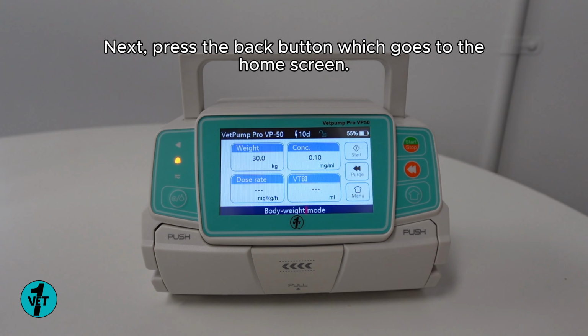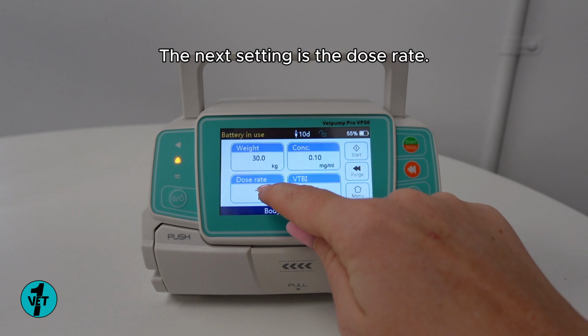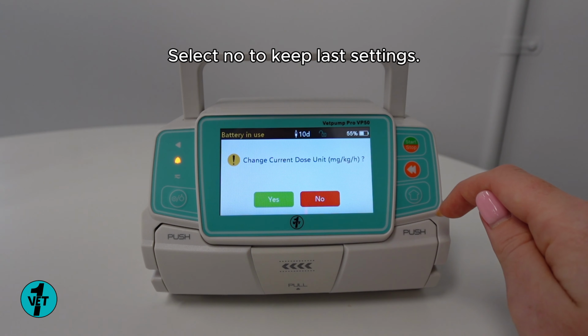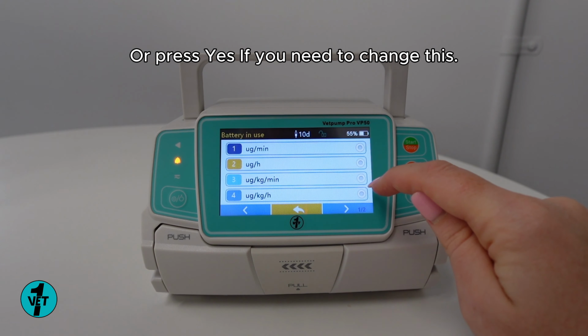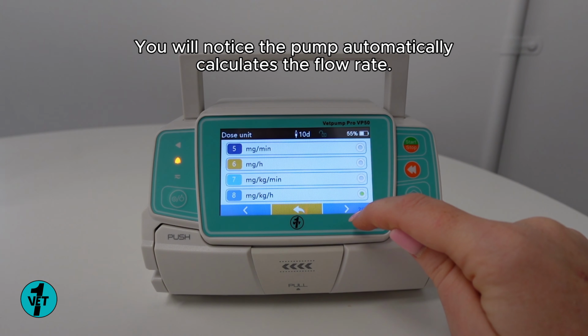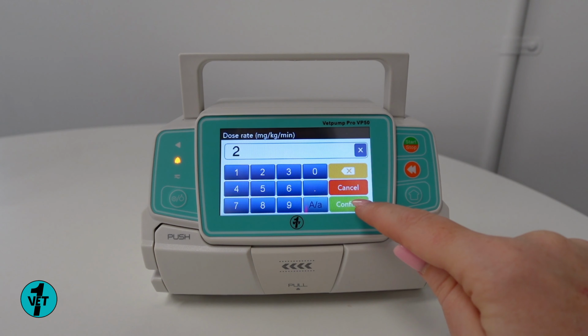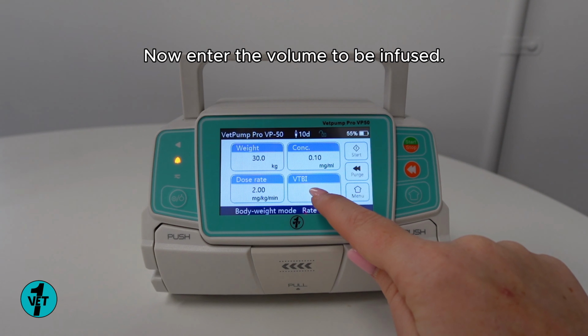Next, press the back button, which goes to the home screen. The next setting is the dose rate. The pump will default to the previous settings. Select No to keep last settings, or press Yes if you need to change this. You will notice the pump automatically calculates the flow rate. Now enter the volume to be infused.